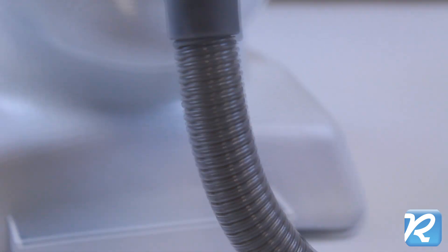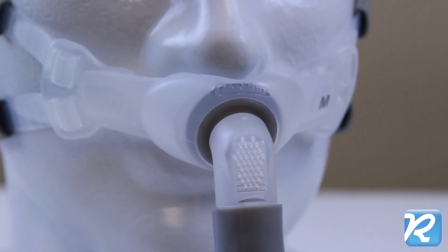A 12 inch section of tubing and a swivel adapter prevent downward drag on the pillows.